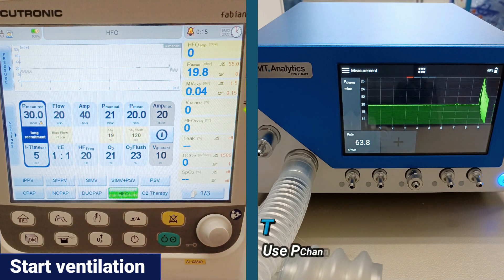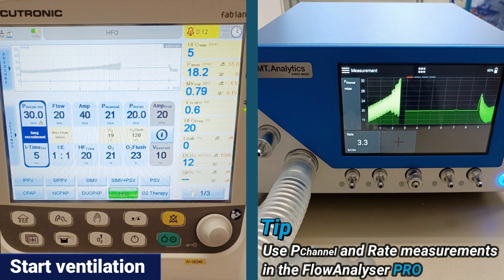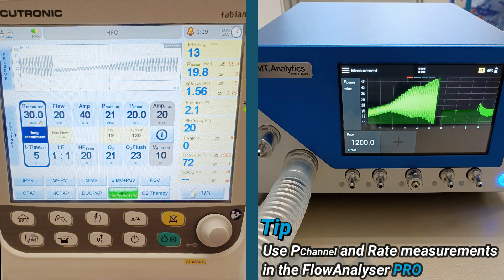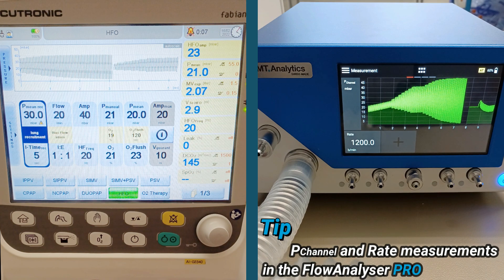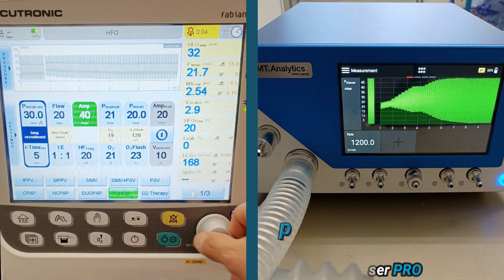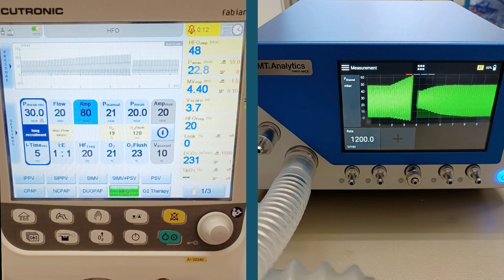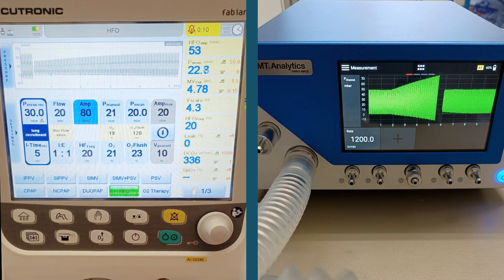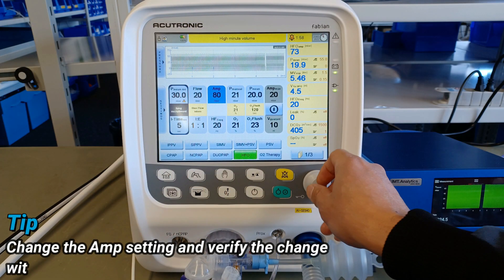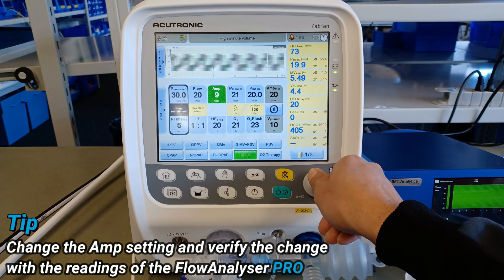Use P-channel and rate measurements in the Flow Analyzer Pro. Change the Amp setting and verify the change with the Flow Analyzer Pro.